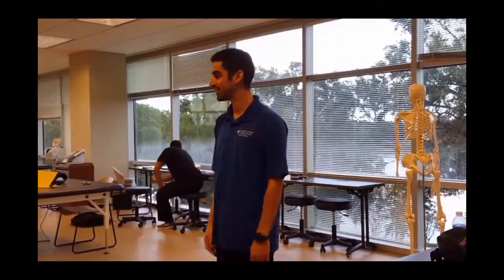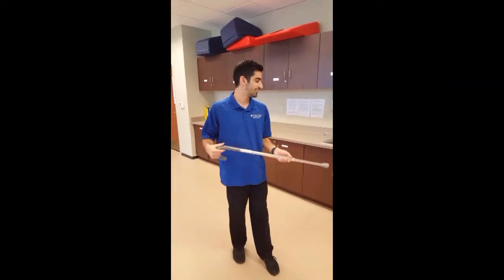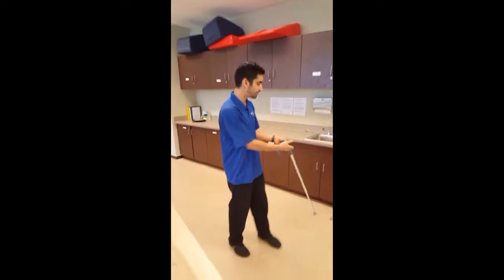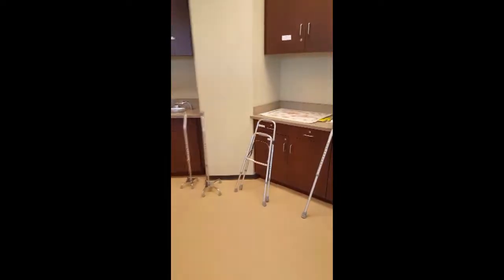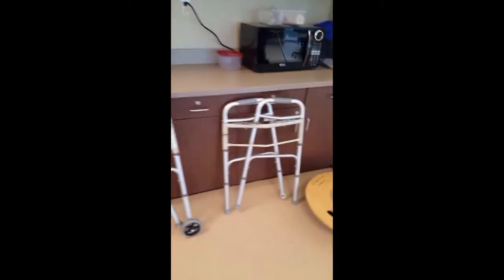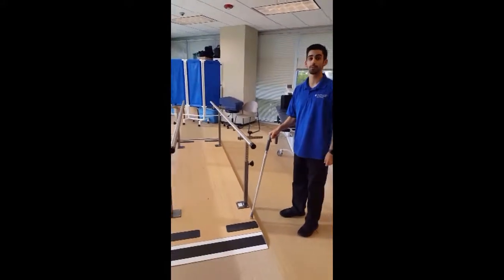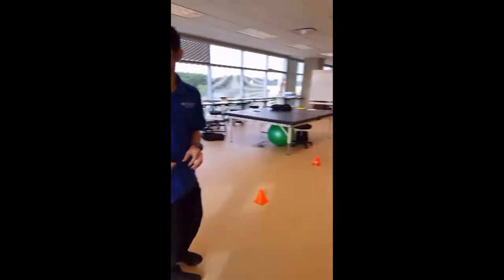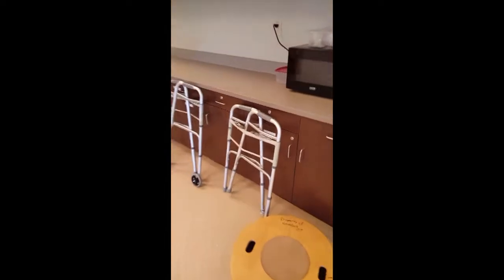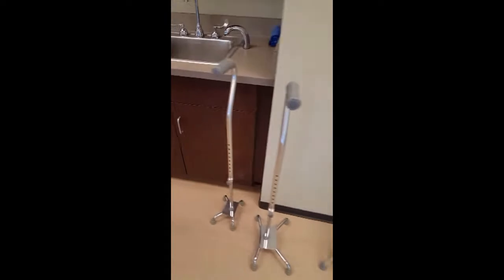My name is Christian, and today I'll be teaching you how to choose and fit an assistive device. Choosing a device for a patient, you have a variety of options. From the left over here, you have the most mobile devices, and it ranks down all the way to the least mobile devices. However, this device, even though it's the least mobile, is going to be the most stable. So it's the opposite the other way. From right to left, it goes from most stable all the way to the least stable device, which is going to be this one.